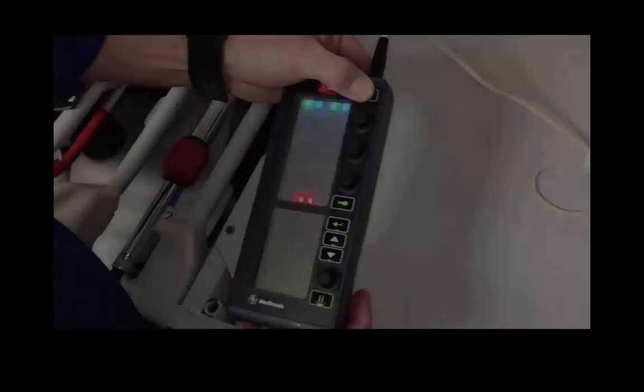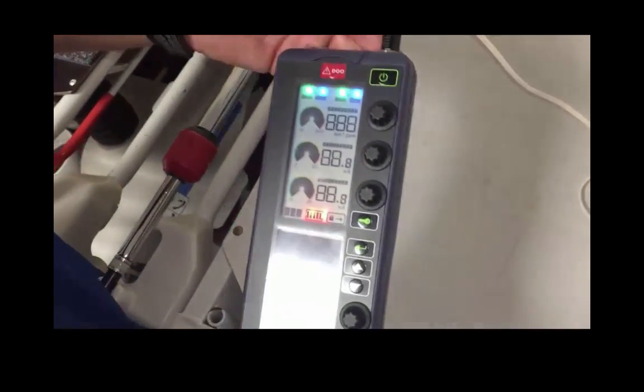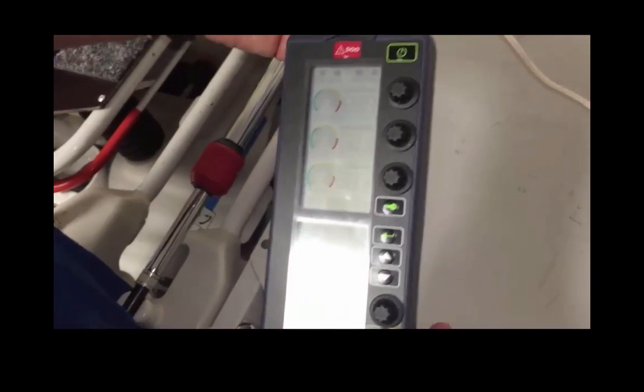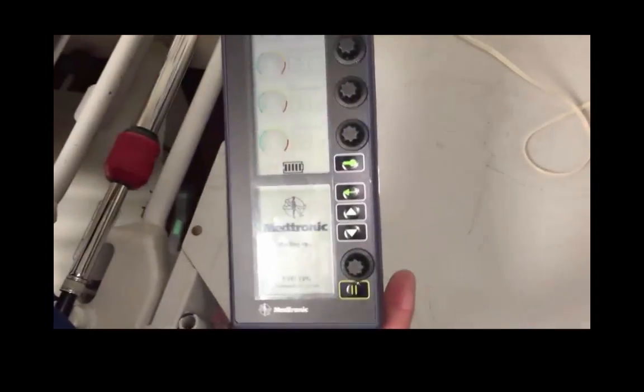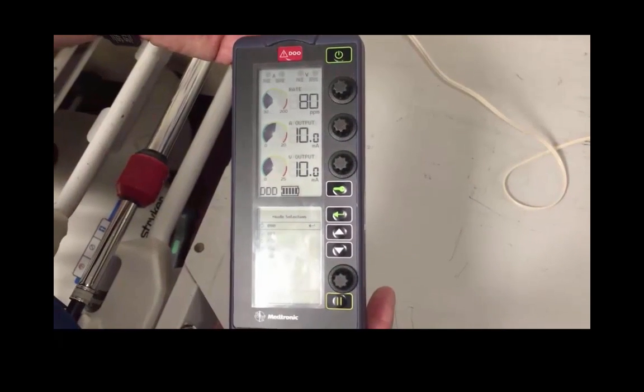When you turn on the device using the green power button, it'll go through some pre-operational checks, and the default mode will be a dual-chamber synchronous pacing mode, or DDD.